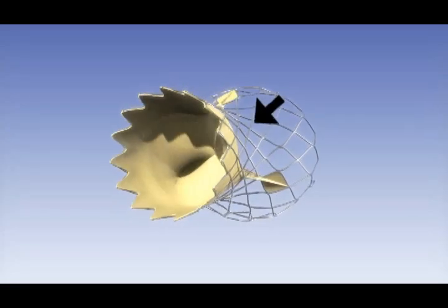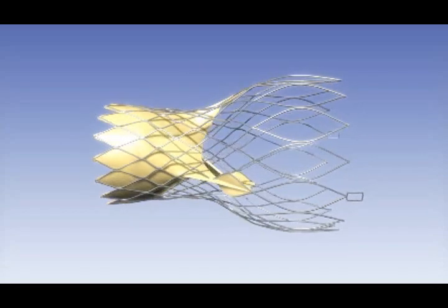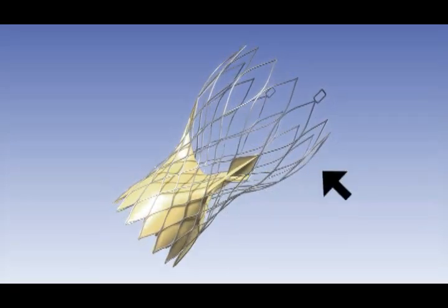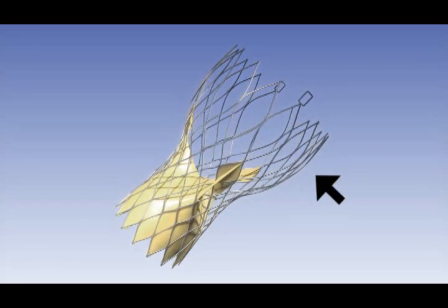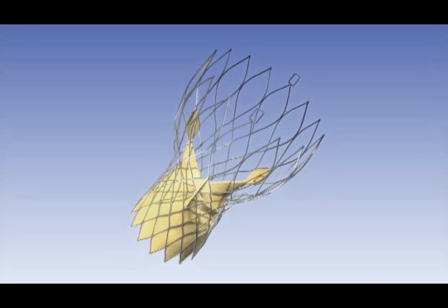The middle part is constrained to a given diameter size and hosts the functioning area of the tissue valve. The upper part implants itself on the ascending aorta so as to access the prosthesis parallel to the blood flow.